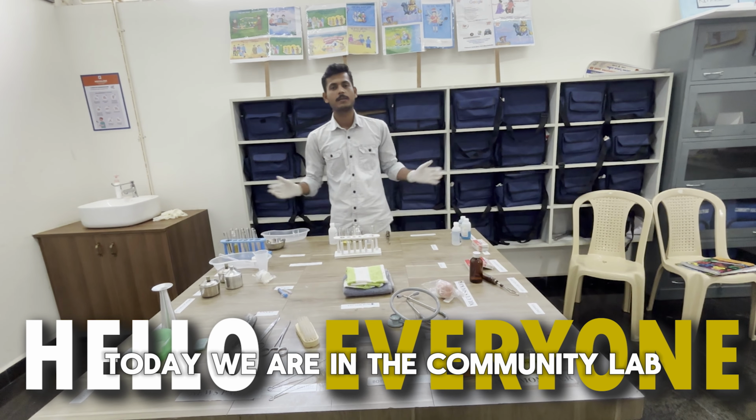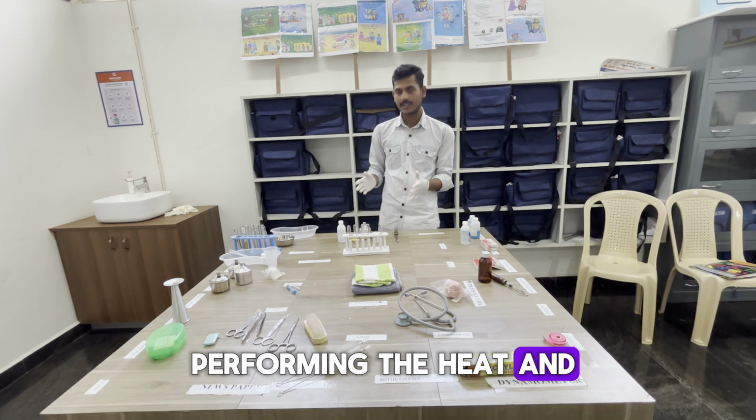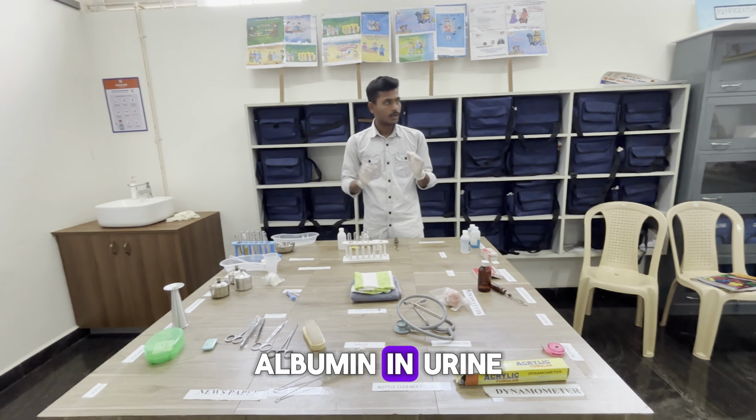Hello everyone. Today we are in the community lab and we will be performing the heat and acetic acid test. This test helps to detect the presence of protein albumin in urine.